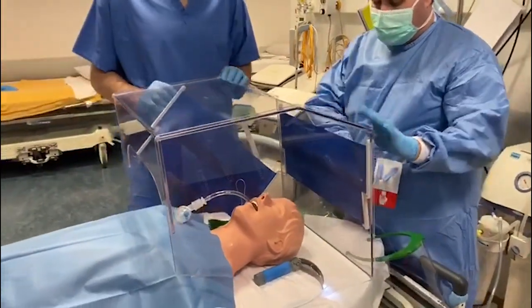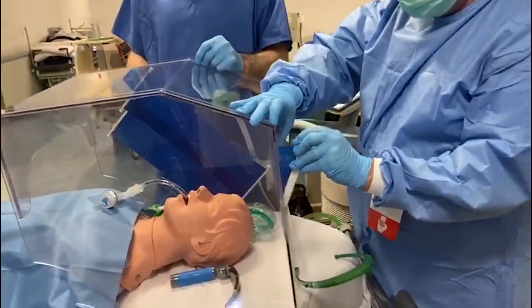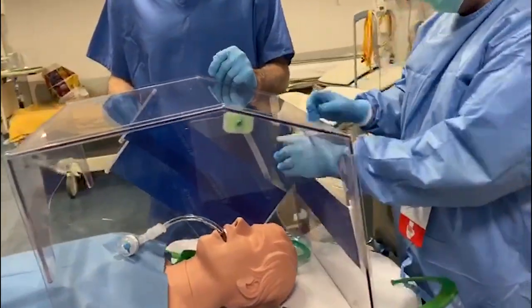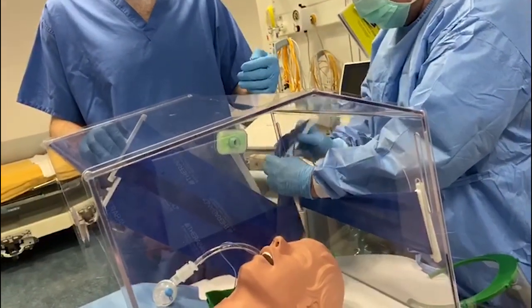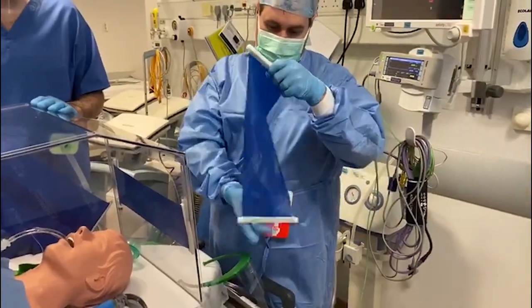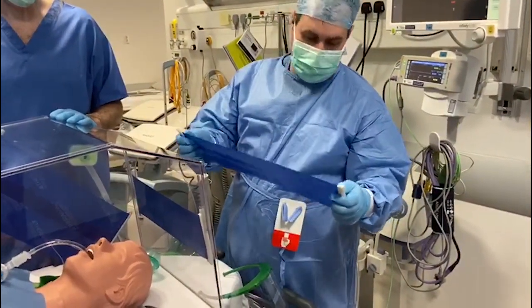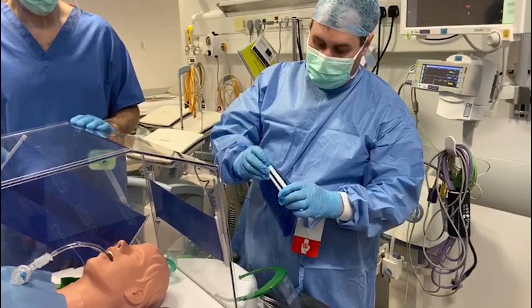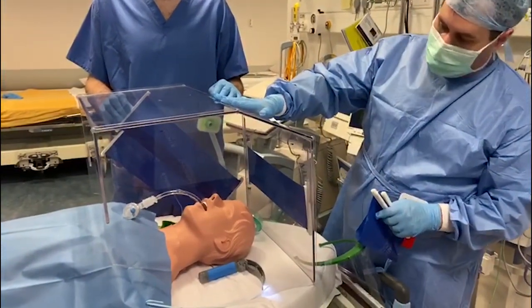As you can see, there's a really good seal, and a clever mechanism for the seals coming apart at the end once you're done. This is just a physiotherapy TheraBand. We can just drop this into a bucket of disinfectant or chlorinate solution, and we can wipe down the box thoroughly as per local guidelines.